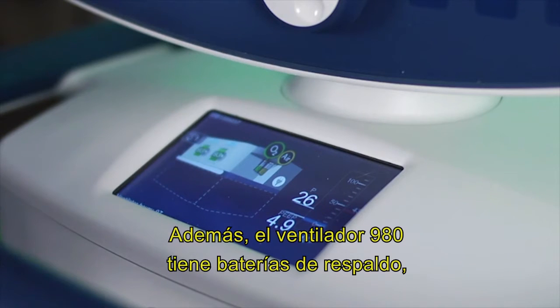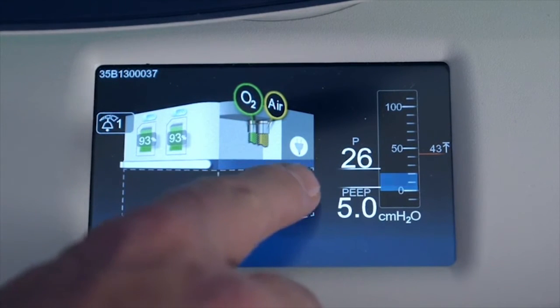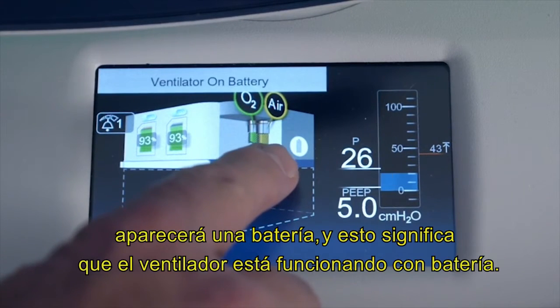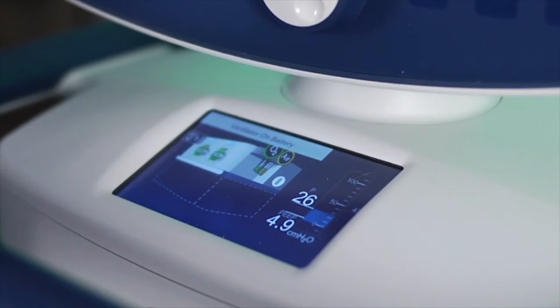Now another thing is that the 980 ventilator also has backup batteries. If I were to lose basically my AC power, if I unplug that, you'll notice that instead of this icon here looking like a plug, it goes to what looks like a battery, and it says the ventilator is on battery. I'm going to go ahead and plug that back in.